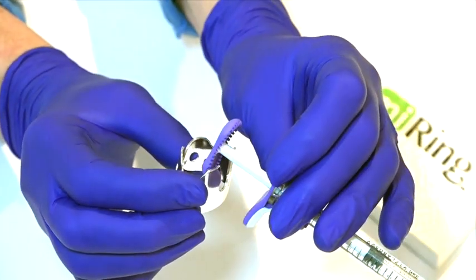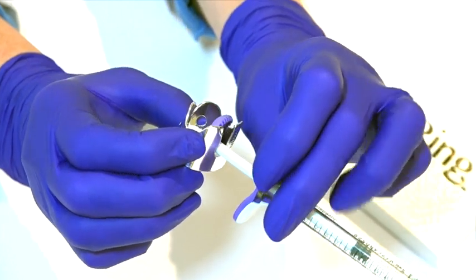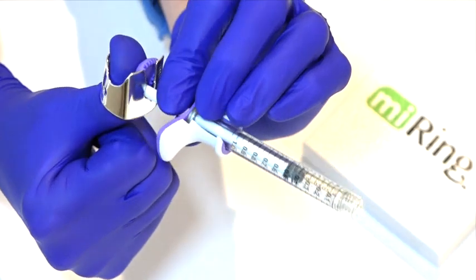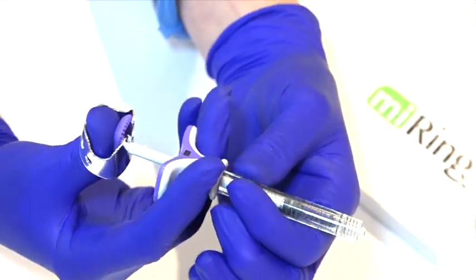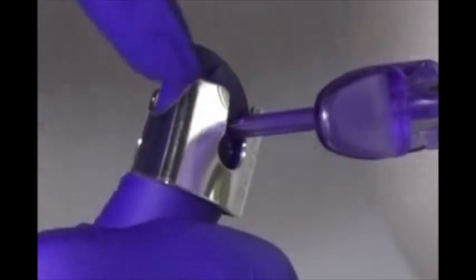Place the syringe head and shaft to the bottom of the slotted groove, ensuring that the shaft stays at the bottom of the slotted groove. When placing on the thumb, push down on the shaft rather than pushing on the ring to tighten to the belly of the thumb, as this will only unseat the syringe.